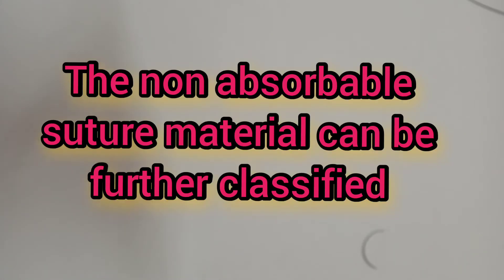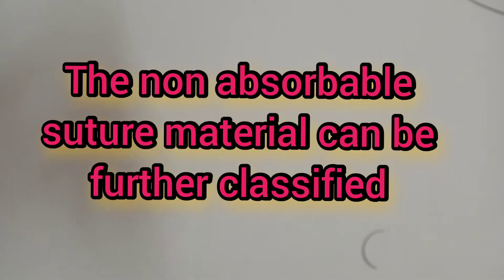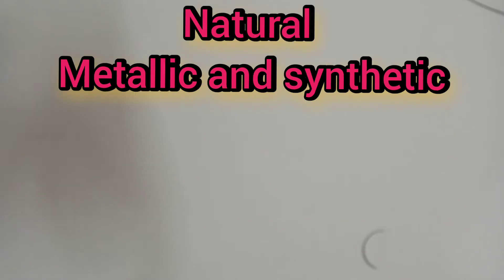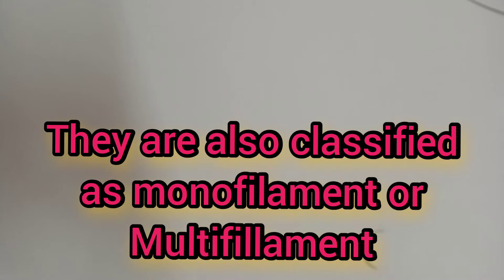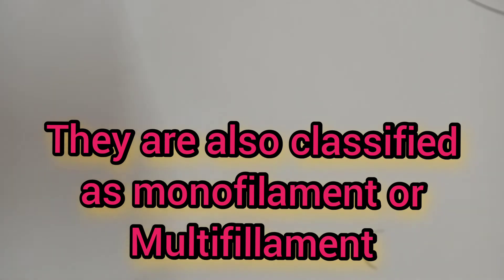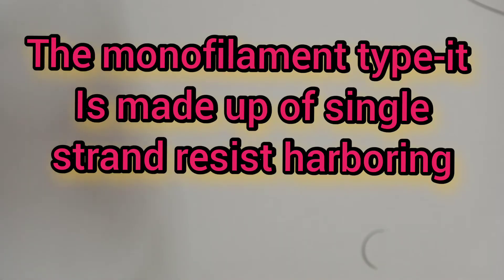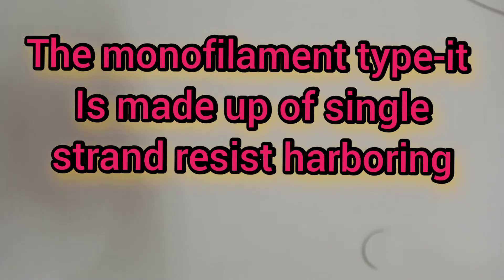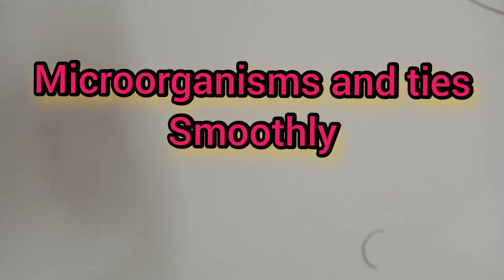Non-absorbable suture materials are further classified into natural, metallic, and synthetic. They are also classified as monofilament or multifilament. The monofilament type is made up of a single strand, resists harboring microorganisms, and ties smoothly.